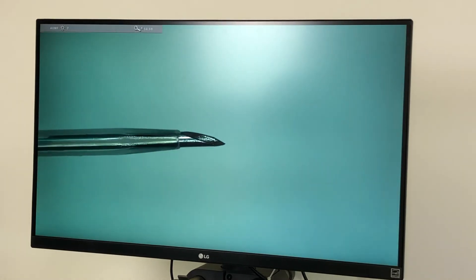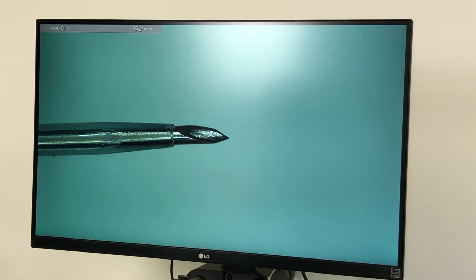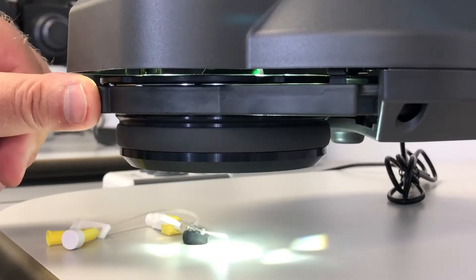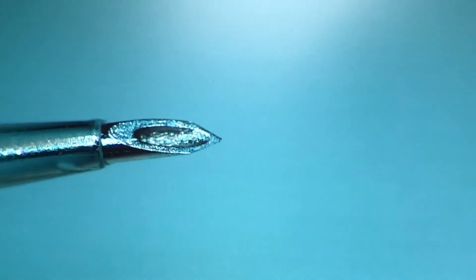Here we have a great magnification range so we can easily see the tip of that needle and check for contamination or sharpness. With the ability to bring in the image obliquely we can now rotate 360 degrees around that tip while maintaining focus. We can see into the barrel, we can see the dual grinds, check for contamination or a bent tip.